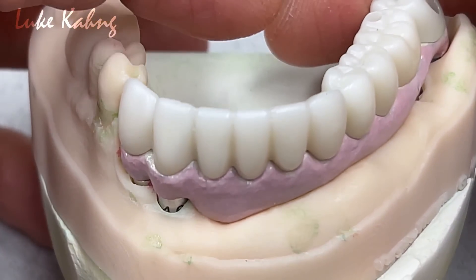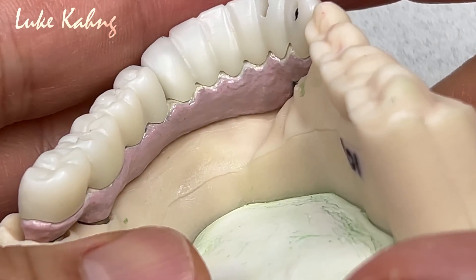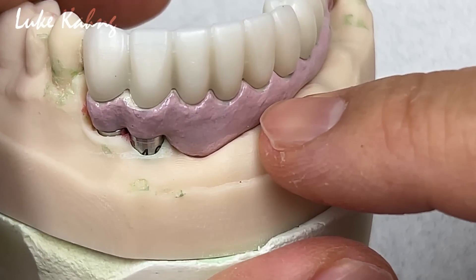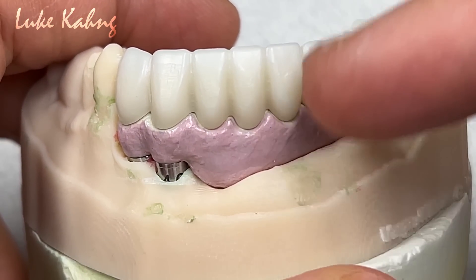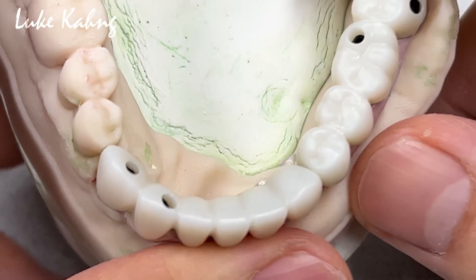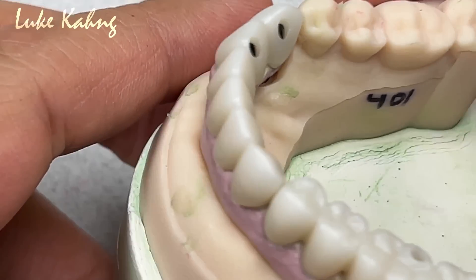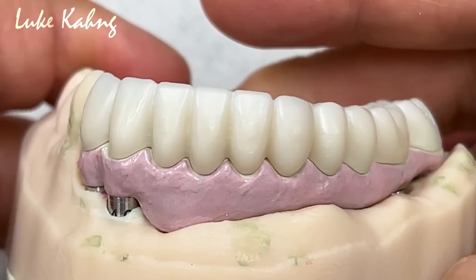This is the frame design I'd like to share with you. We have two different porcelains: one is metal ceramic — I'm using the GC Initial metal ceramic — and the other is zirconia, which is low-fusing with a different porcelain and totally different CTE, so we cannot use both. We're going to contour a little bit better and put the top of that in an aesthetic mill, then put it through the porcelain work here — a total piece of artwork. Stay tuned.